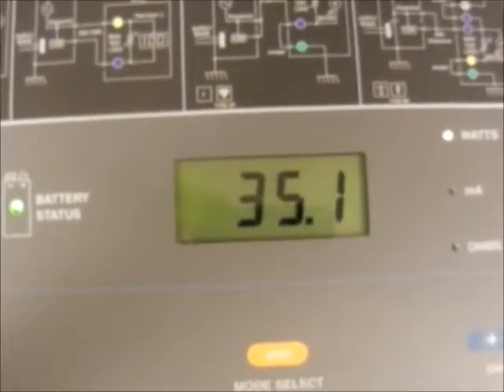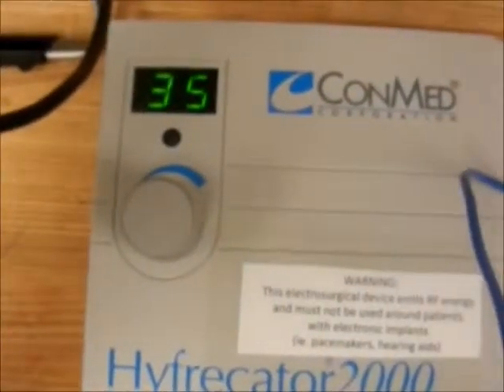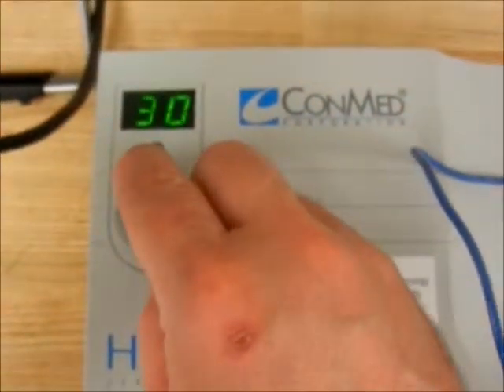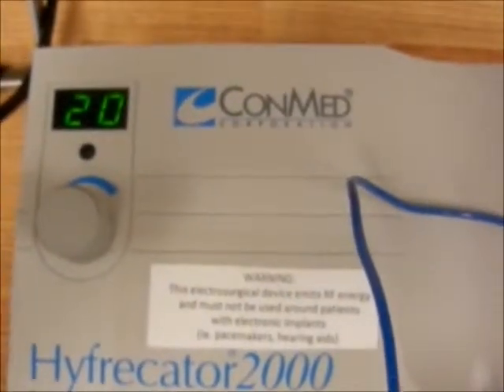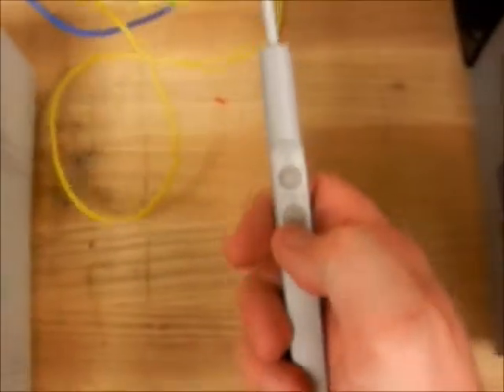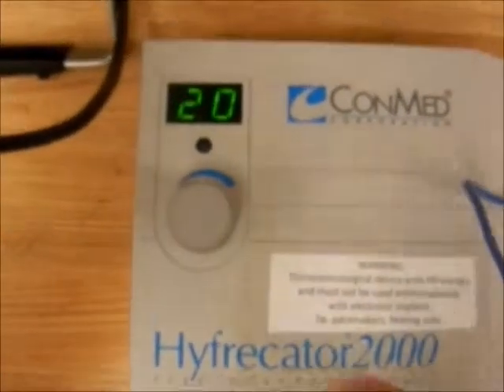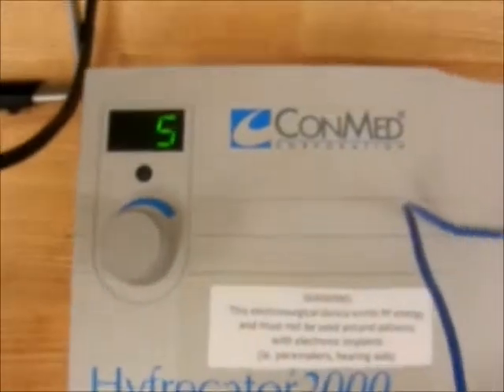While activating the pin, we make sure our wattage is set to max, which it is. We see 35 on the display — we should see 35 on the meter when we activate the pin. Here we are measuring 35.5 and 35.1 on the analyzer, with 35 on the electrosurgical unit. Now let's dial it down to 20. With 20 on the display, we should read 20 on the meter — activating the pin now — reading 19.7. At 5, we should measure 5, and we read 4.4.